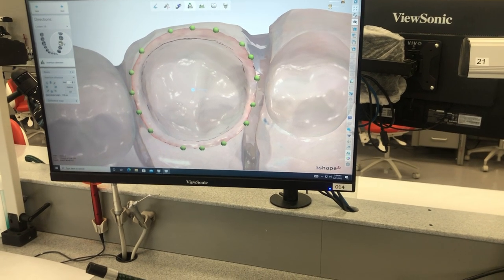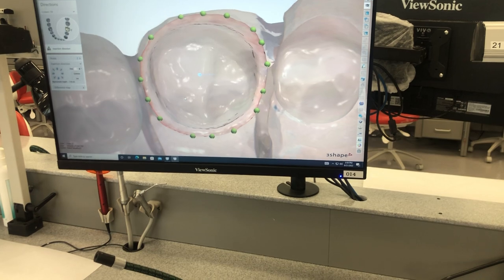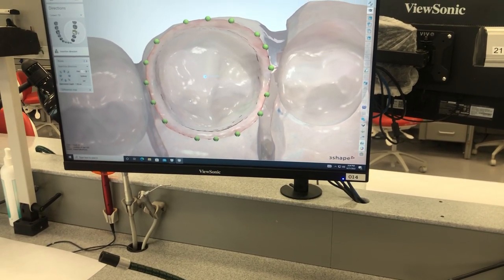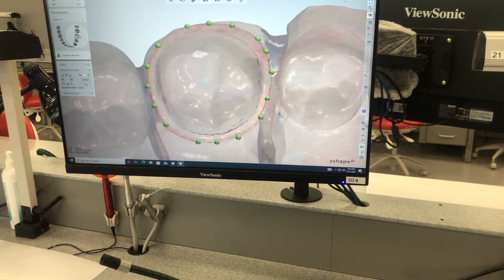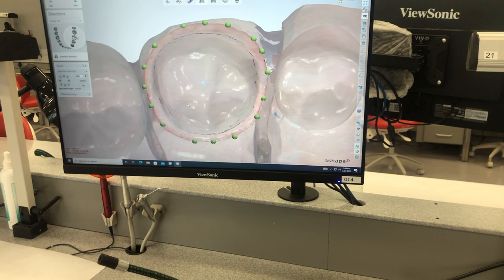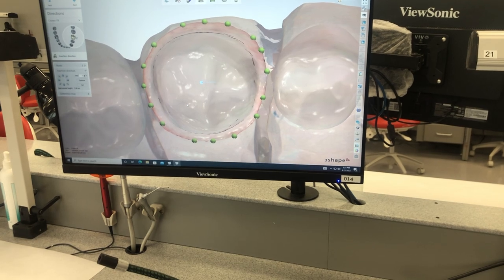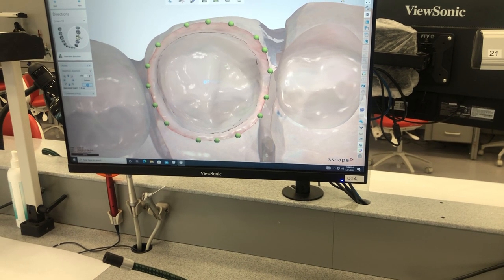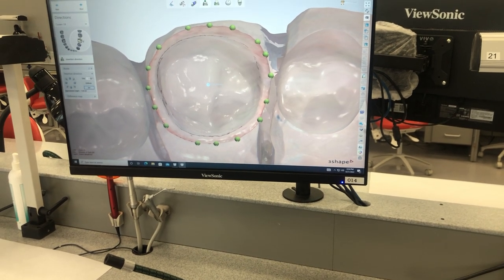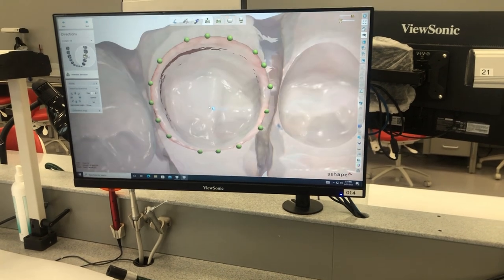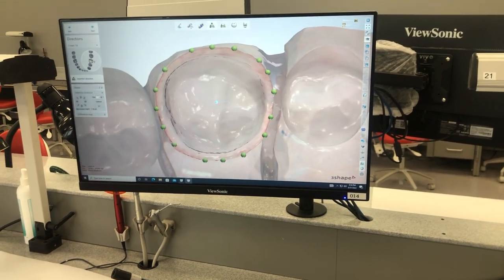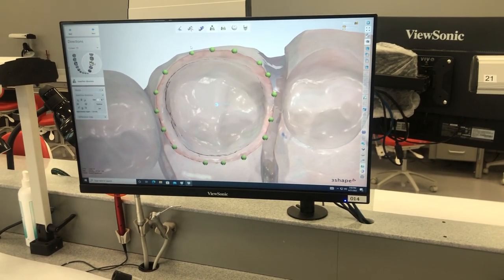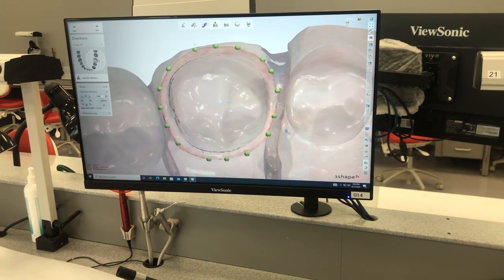Then you click set over here, and that'll set your new insertion axis. So there's a little undercut on this prep, but then just keep continuing through till you get to your crown design.